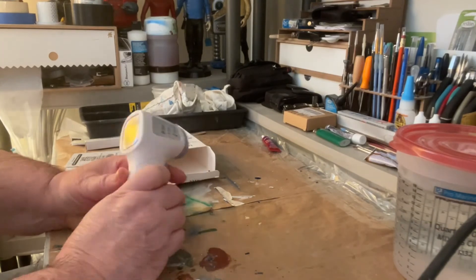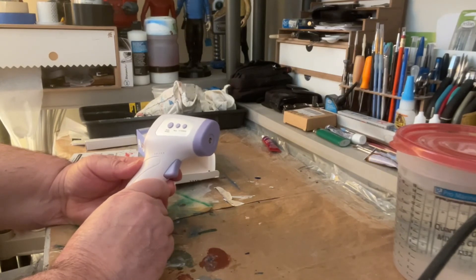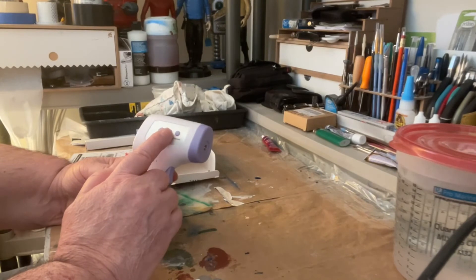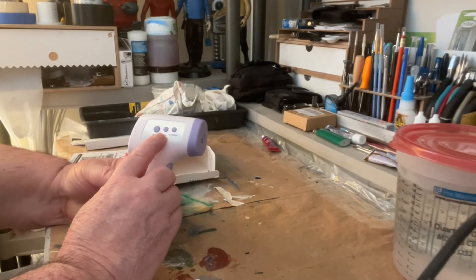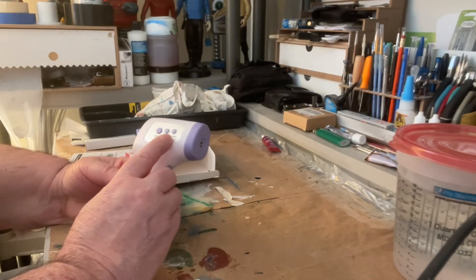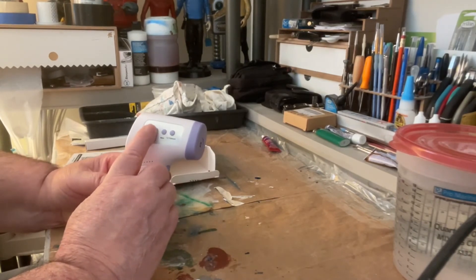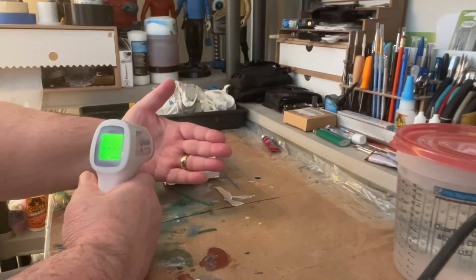This is the infrared thermometer I got today. It's a body surface thermometer that has a memory, so you can log the last temperature reading. It also has a mute so there's no sound — you can mute it so it doesn't beep. As soon as you pull the trigger, you get a temperature reading: 99.8.